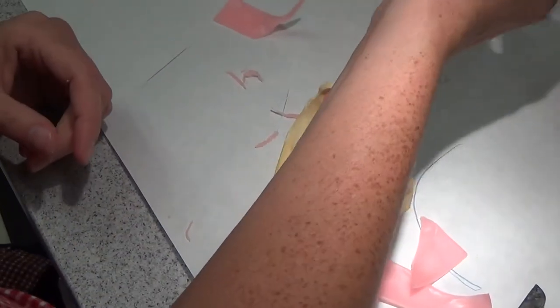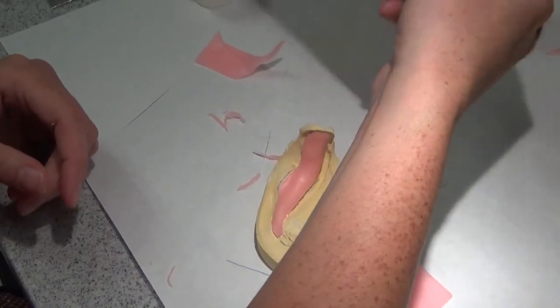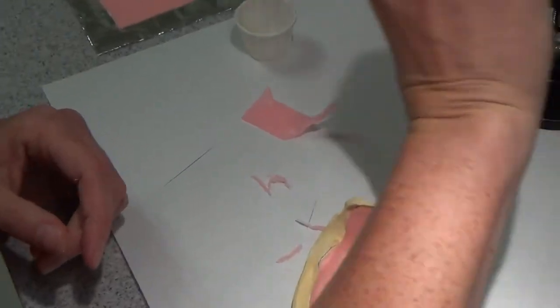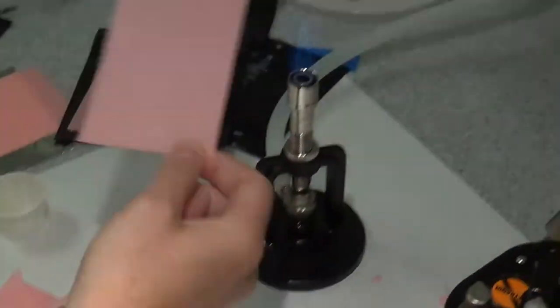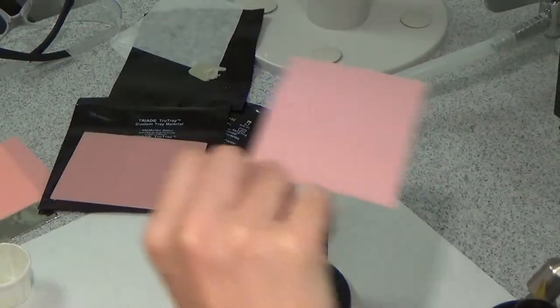This mandible is finished, except I need to cut out the stop, but we'll do that here in a minute. Get the other side covered, and then we'll clear the stop and finalize it.